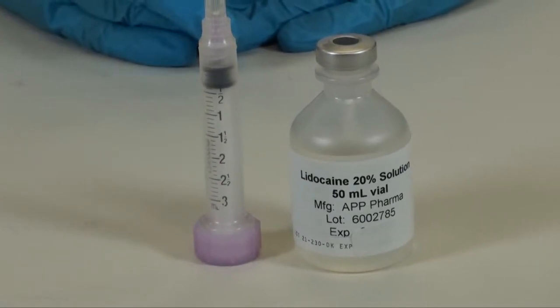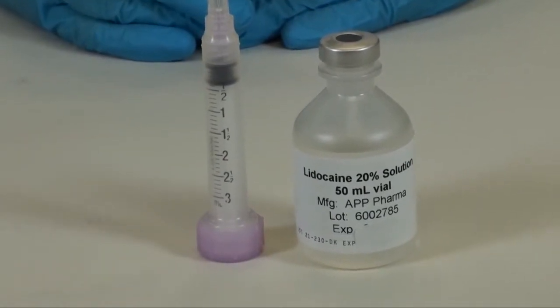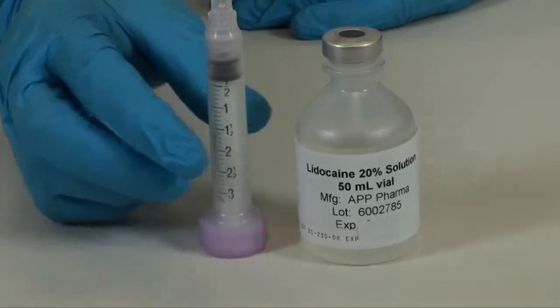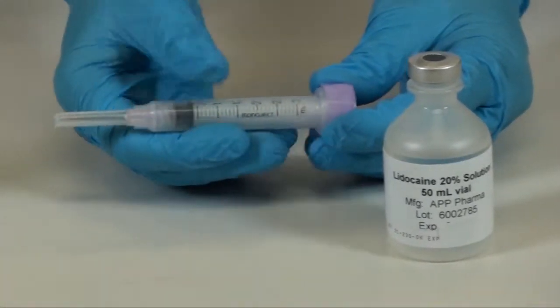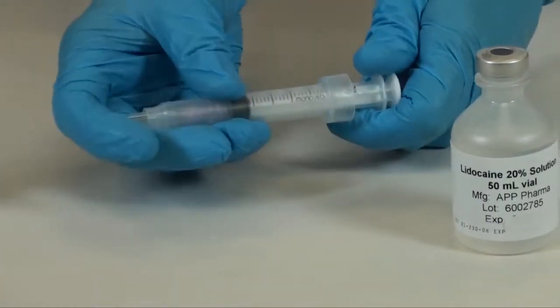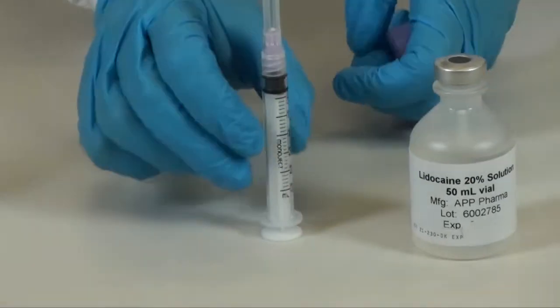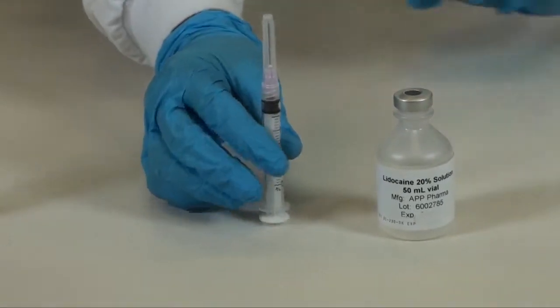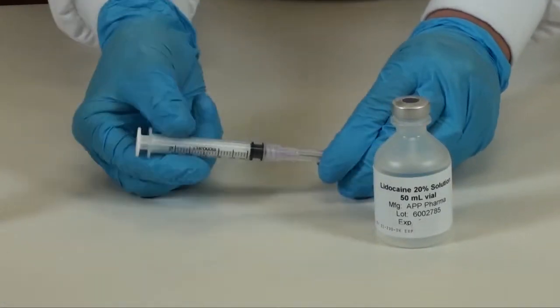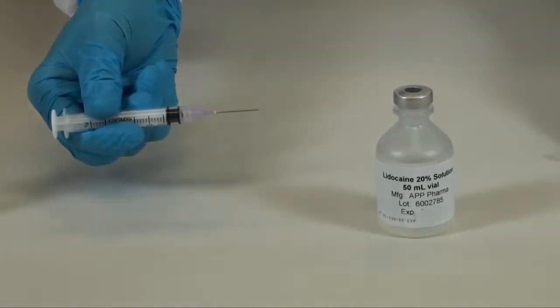This step we're going to measure the required amount of 20% lidocaine solution. We will be using a 3ml syringe with a needle attached. Remember to carefully remove the needle cap away from your fingers.